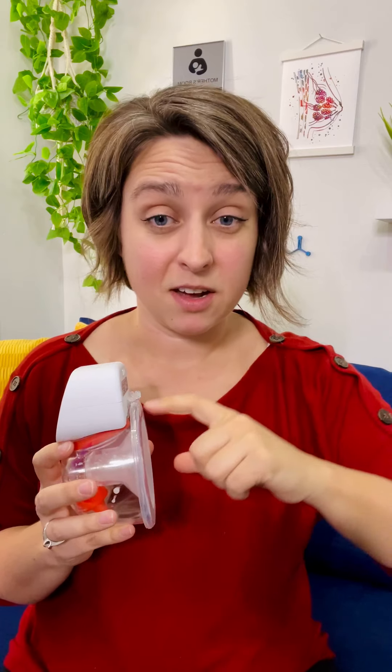That discount works with the cups and supplements. I've actually never bought a product from Legendary Milk that I don't love, so this one also measures up. If I was trying to decide on this pump, it would boil down to: do I want this style? If you're looking for the cup style with a motor on top, 100% I'd recommend this one over many others. If you're wanting a pump with flanges or a cup you can hook to a separate pump like your Genie Advanced, this won't work — you have to use it with the motor it came with. Legendary Milk does make cups for other pumps. If flanges work best for you, this is not the pump for you, since this is an in-the-bra wearable pump.